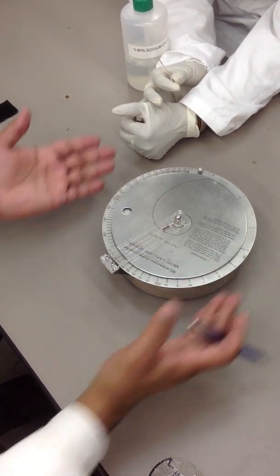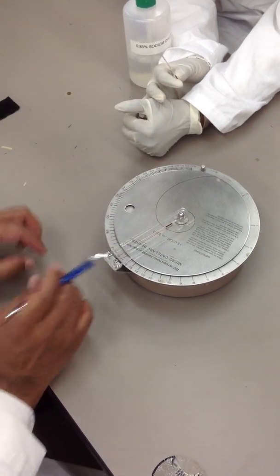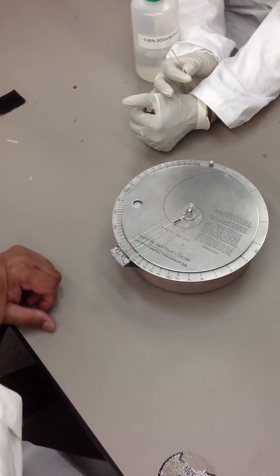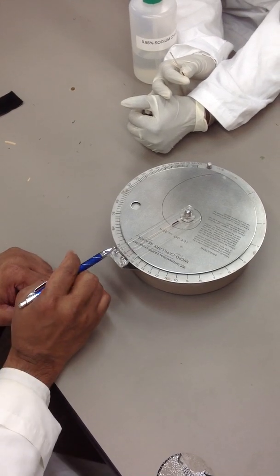Everybody see what I did there? So, now I rotate the whole thing. It's crossing. And then, all I have to do is read the number on the red line.